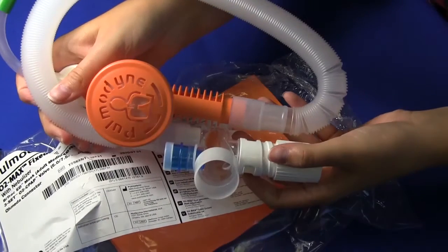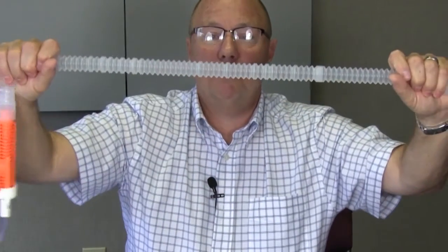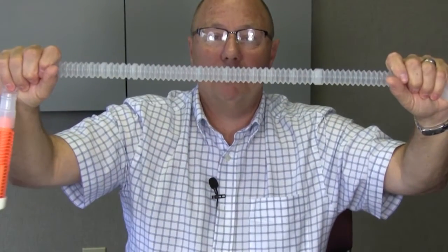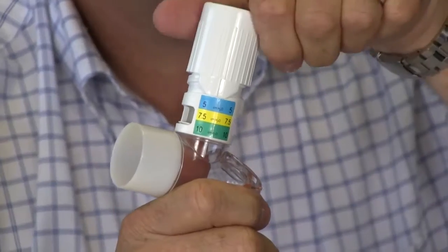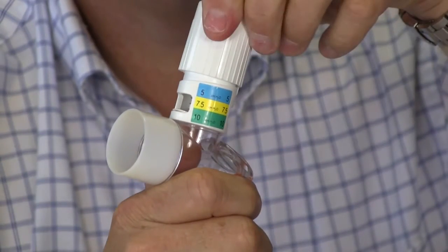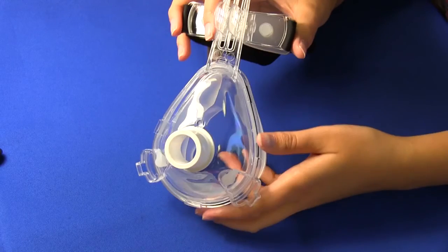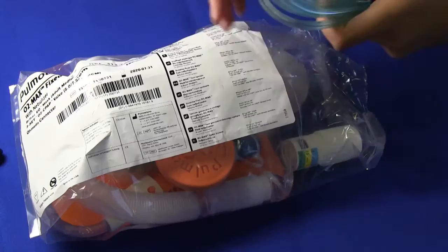One fixed flow generator with filter, a 72 inch anti-asphyxia circuit, O2 CPAP valve, a mask with head strap, and a nebulizer.